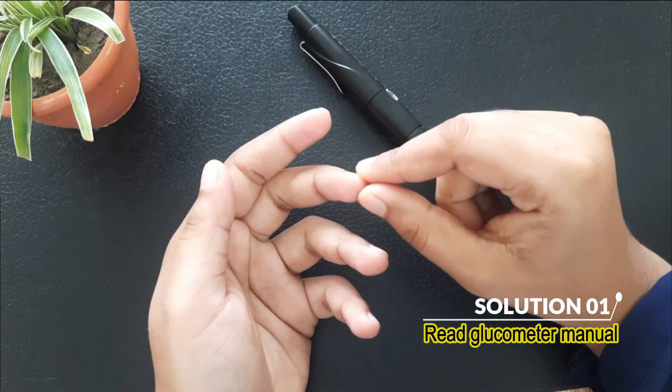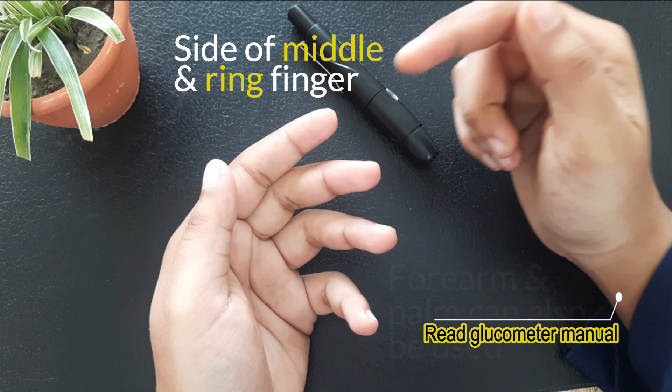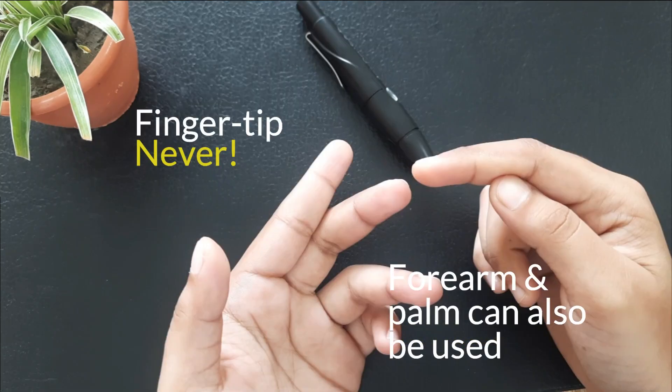The side of the fingertip of middle and ring finger is the most common choice, but the forearm and palm can also be used. But never the fingertip.